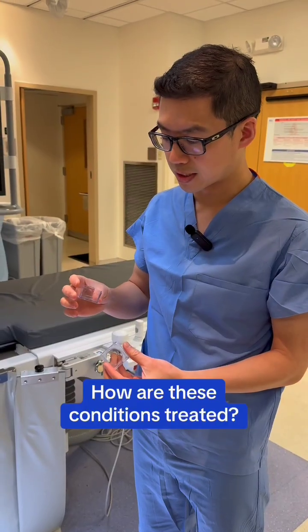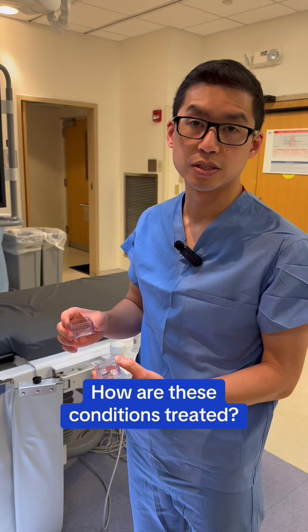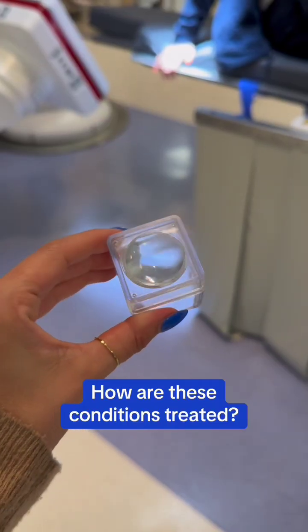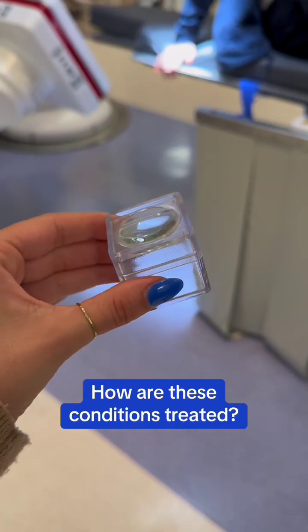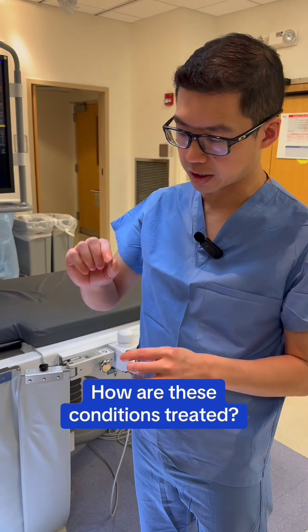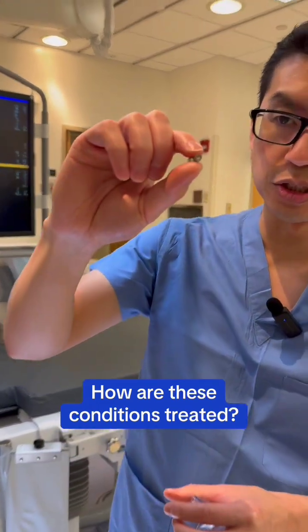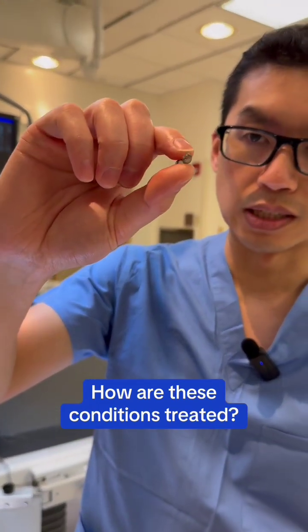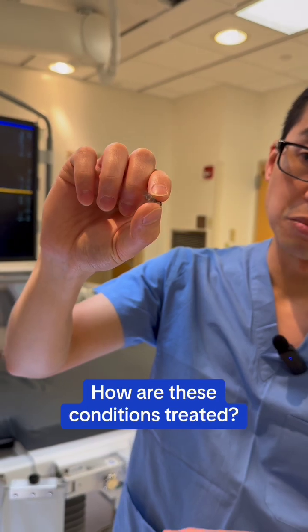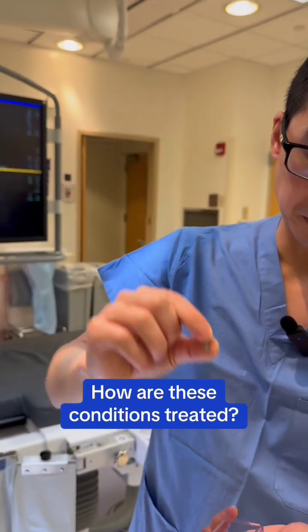Some of the devices that we use to treat these malformations are either coils, glue, or flow-diverting stents. For example, this is one of them. This is kind of like a miniature slinky — you can see here it squishes and bounces. It's flexible, so it fits inside and conforms to the vessel, but it changes the flow dynamics inside of it.